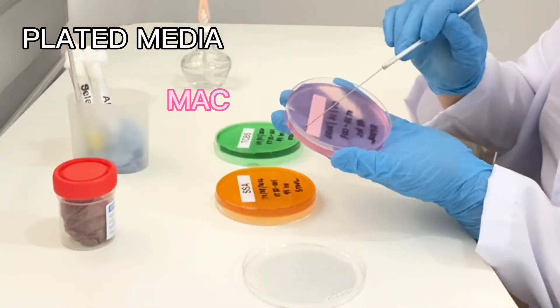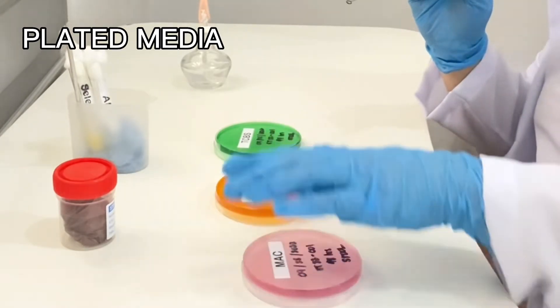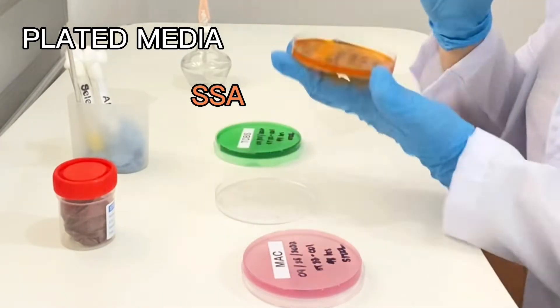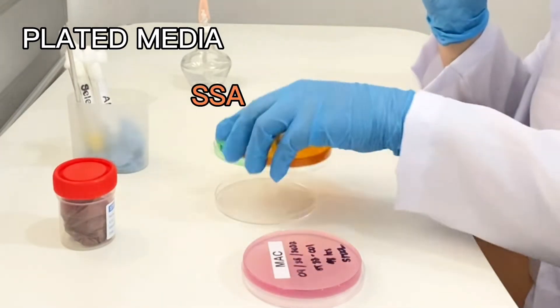Then roll the loop on all the plates for the MAC, SSA, and the TCBS agar.